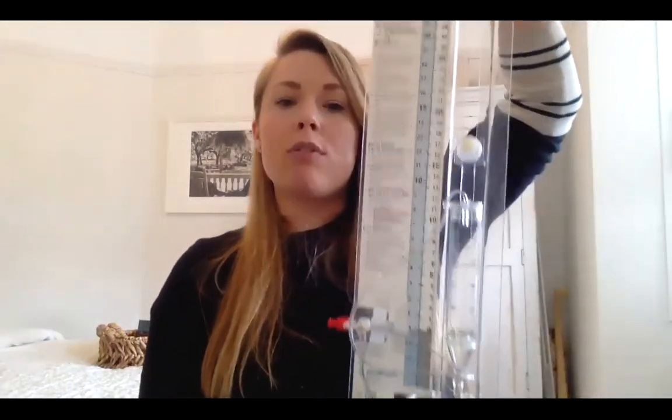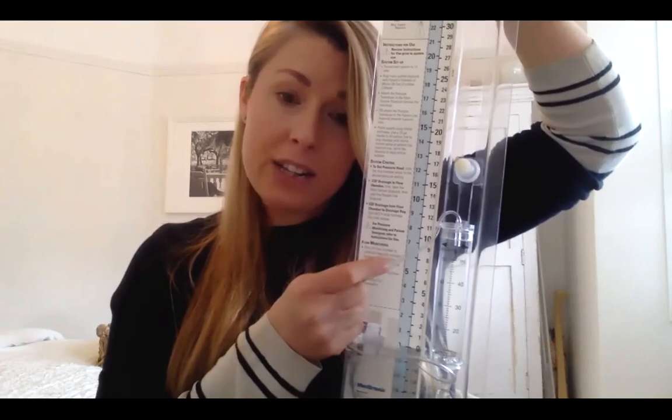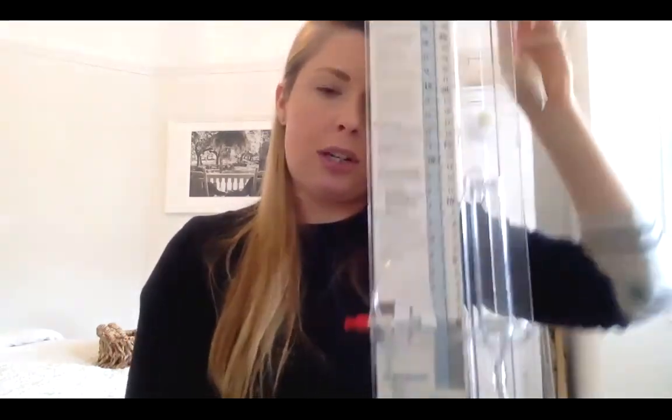And when we talk about lowering the EVD to the floor, you're literally just going to take it off the drip stand, hold it where it is, and gradually lower it to the floor. And the minute that you start to see even just a drip dripping into this chamber, or swing in the tubing with respiration, you can be reassured that the EVD isn't blocked. It might be under draining. You still want it looked at, but it doesn't have to be that 30-minute arrival for a neurosurgical emergency. But if you do that and you get nothing, then you should absolutely expect them to come.